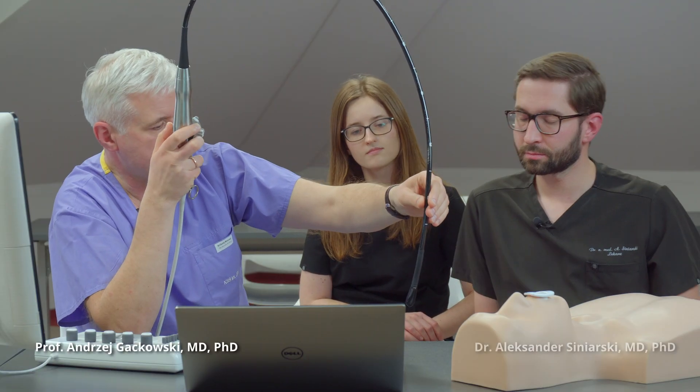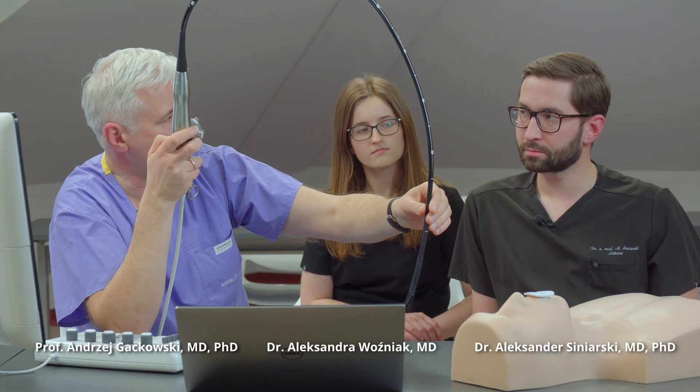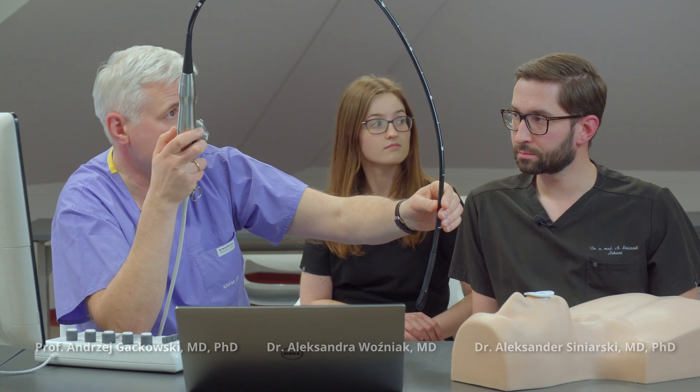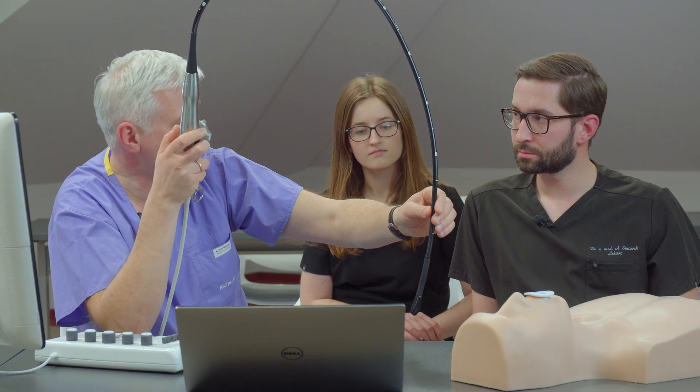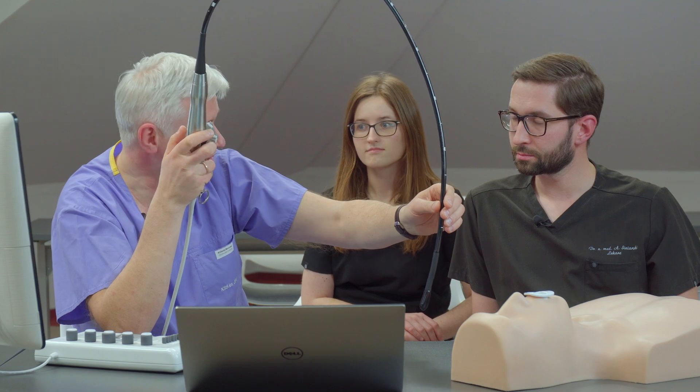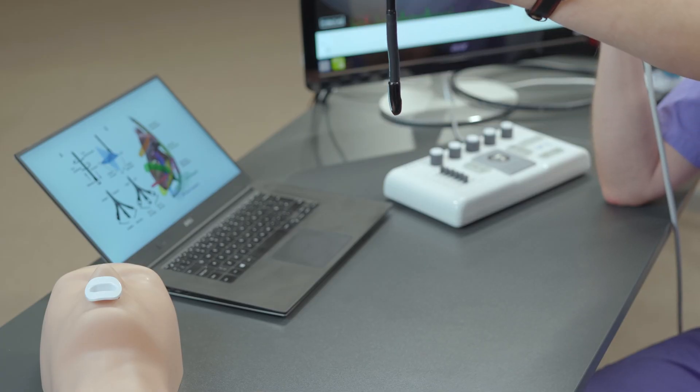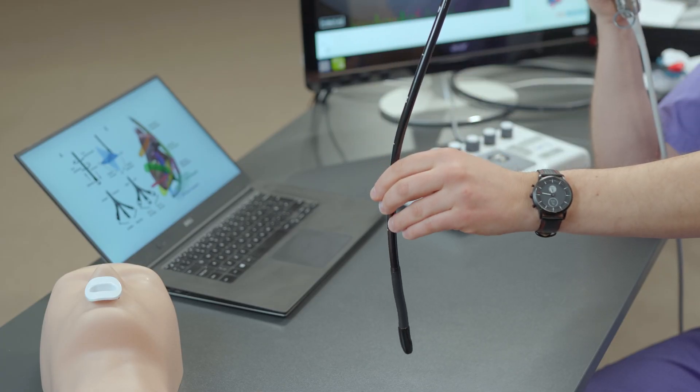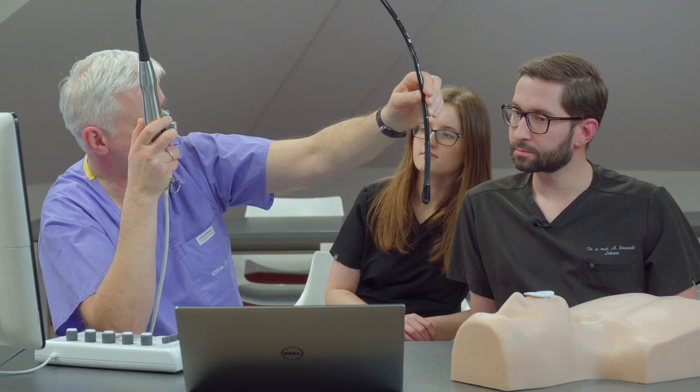OK, so talking about manipulations, we have to understand how many different manipulation types we have to control during the study. First of all, we're going to insert the probe or take it back. This is the depth.